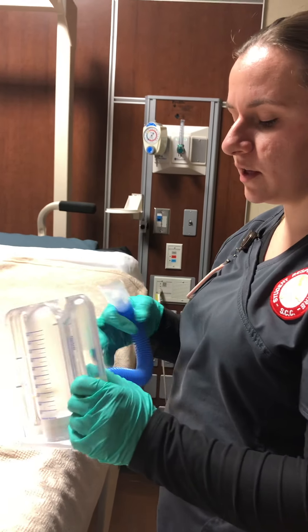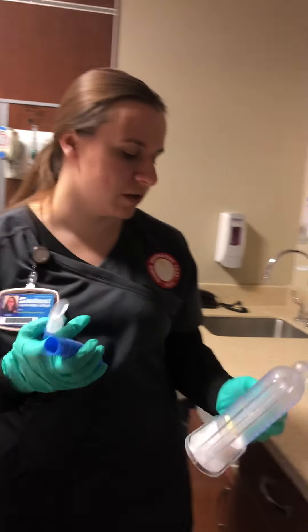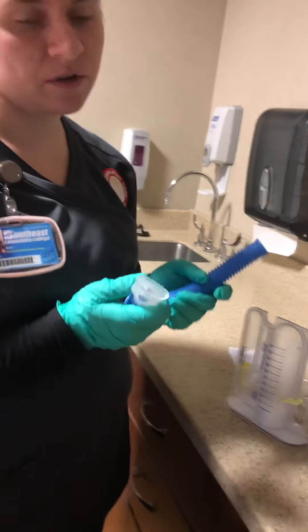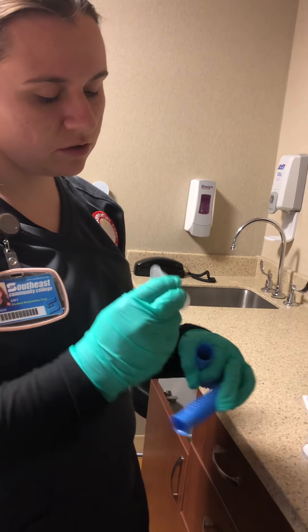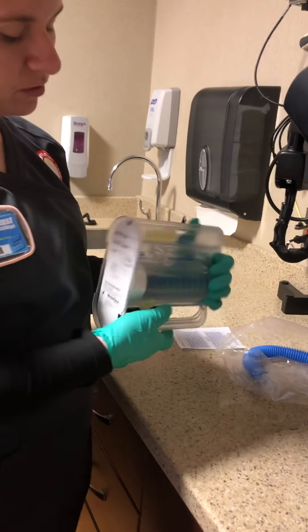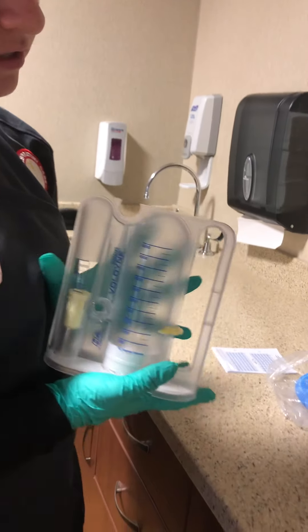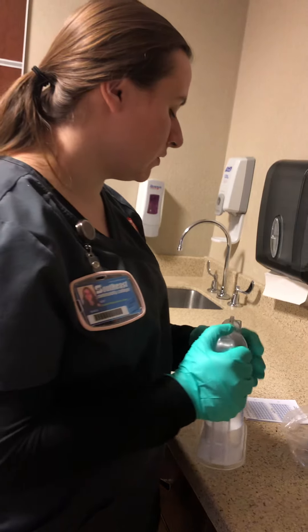When we are done, remove the tubing from the volumetric exerciser. If they're finished, wash it with sterile water and air dry it — you can remove the mouthpiece as needed. You can put the patient's name, patient number, and date at the bottom of the machine, because the patient can take it home and continue practicing to strengthen their lung volumes.